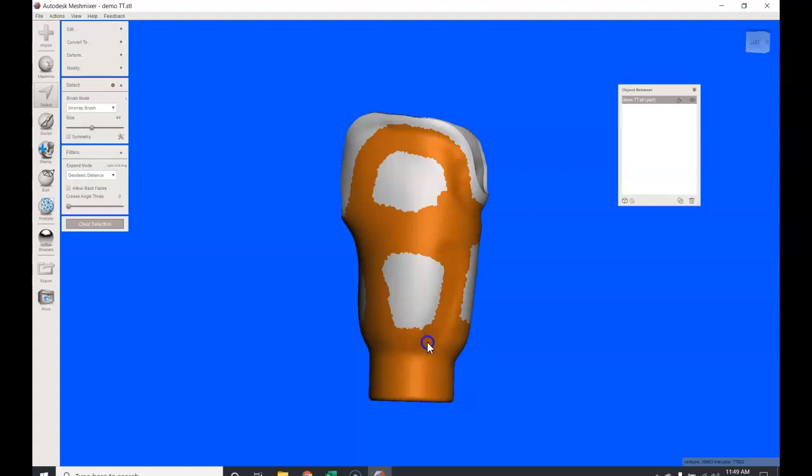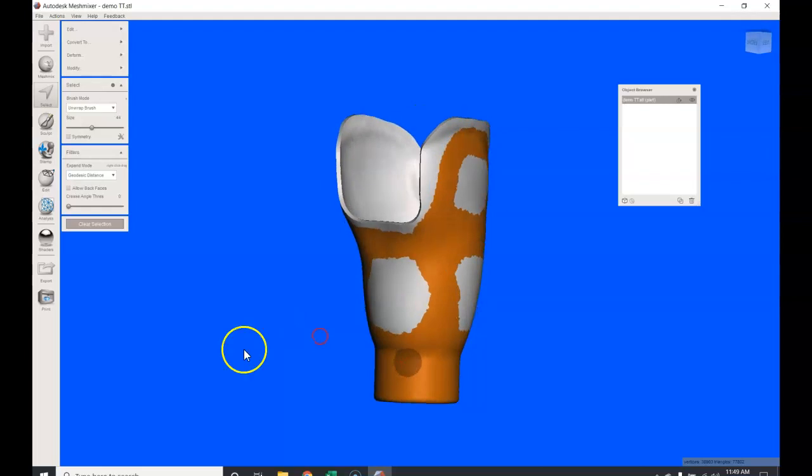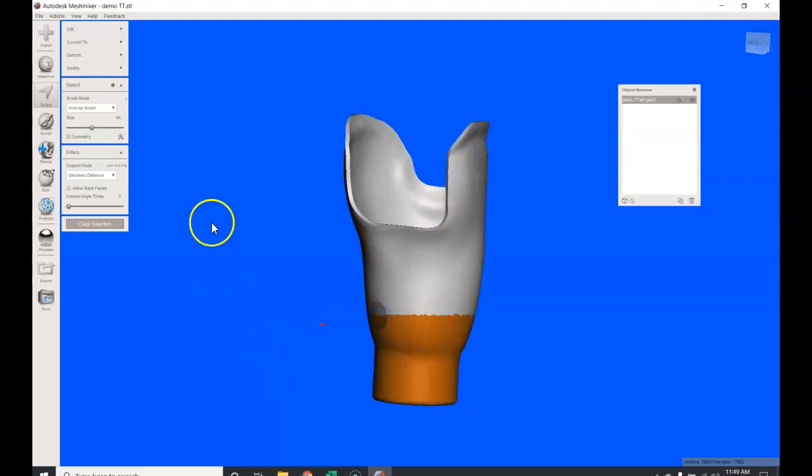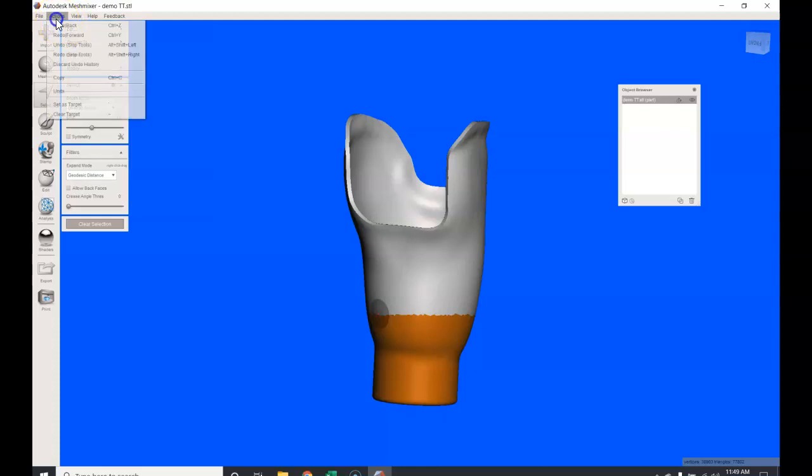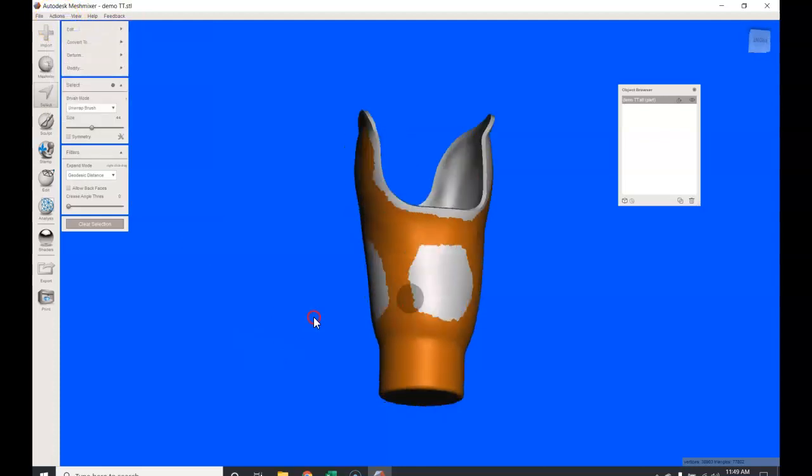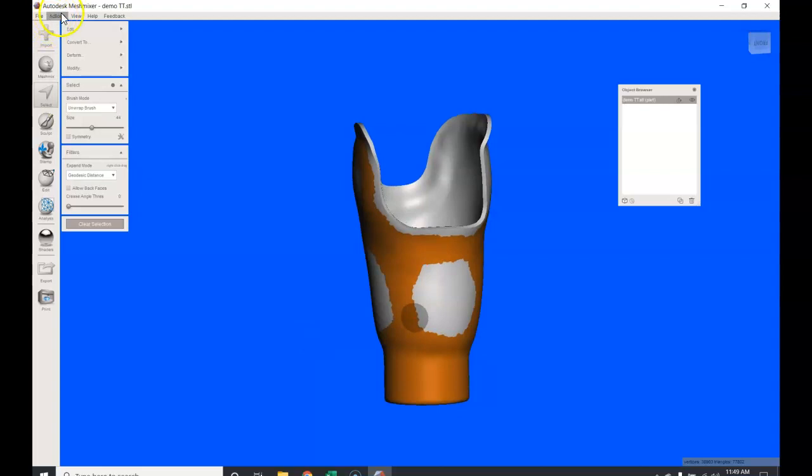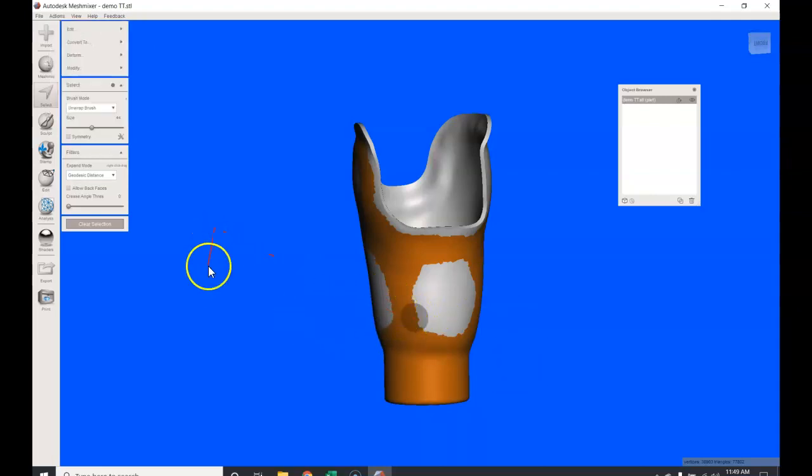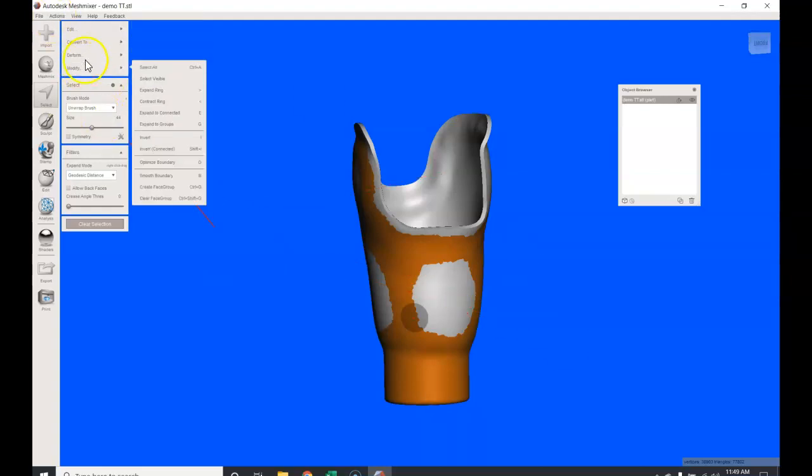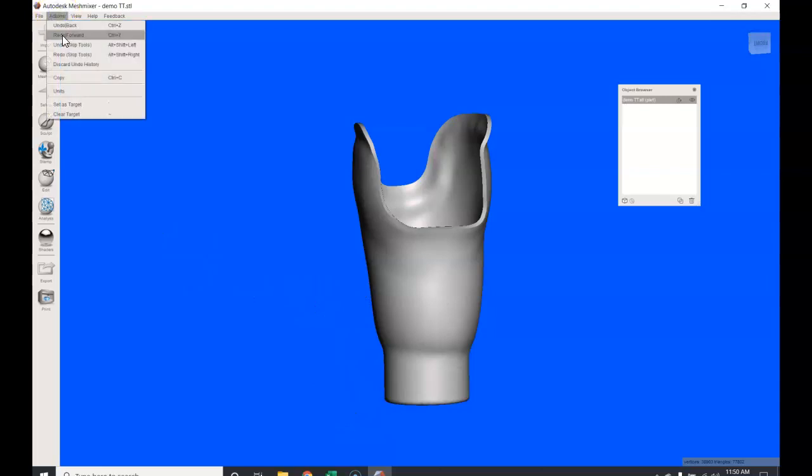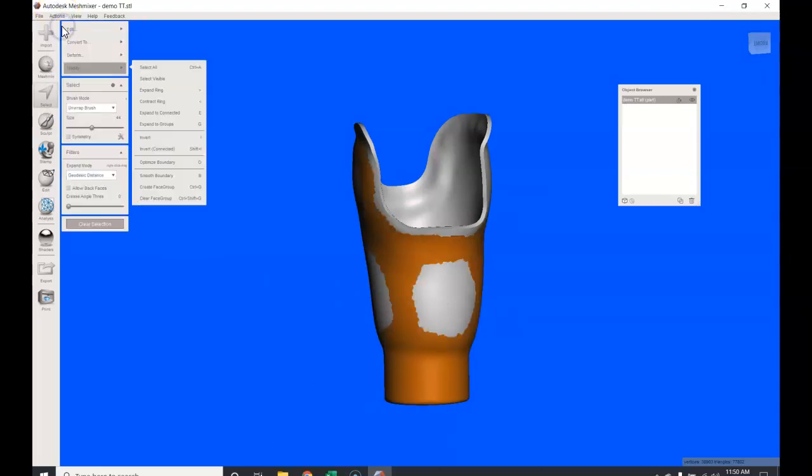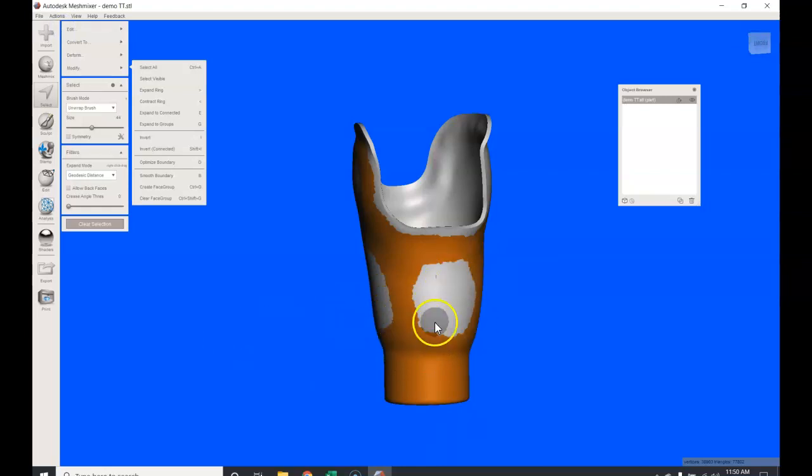I'm using my left mouse button to click; I'm left-handed, so you can probably set up your computer however you want. I like to make sure there's some nice curves; I don't like to have these squared off. I think whenever you're doing a frame design you want to have curves around. I think it does a better job. Now I'm going to erase this area here. I'm going to hit shift, I'm going to hit my mouse button. I'm going to come back and just paint that up a little neater. I'm going to go back, I hit the wrong—there we go. If you ever make a mistake, you can always go back and hit this undo back or control Z; it'll bring you back to where you want to be. I think that's a good thing to know.